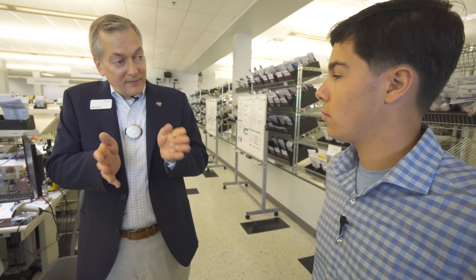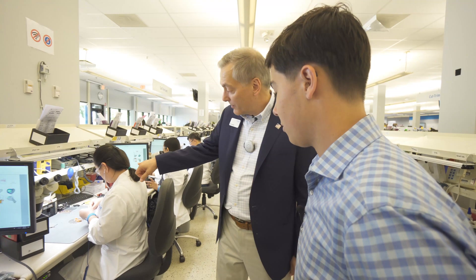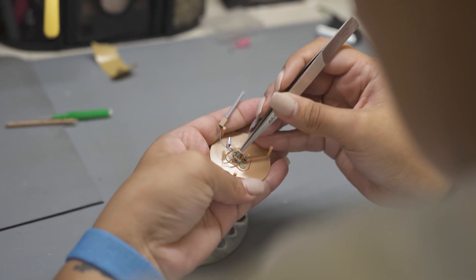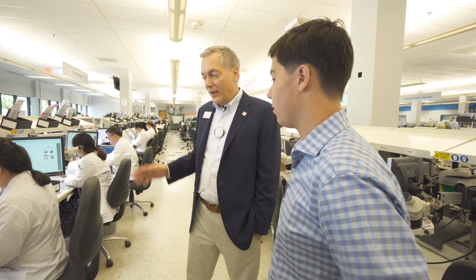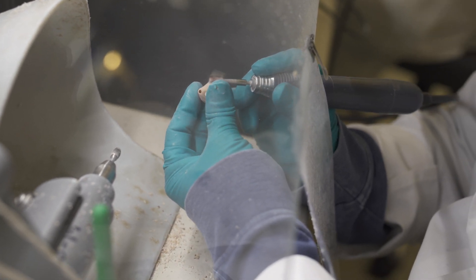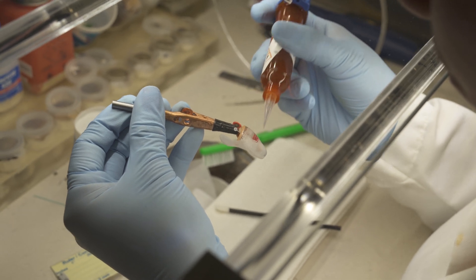The next step is called closing — the faceplate with all the electronics gets mated up with the shell, glued on, and everything is fit inside. Receiver tubing and vent tubing are added and attached into place. Everybody has something that looks like a stethoscope — they're all doing a listening check to make sure what they did didn't short anything out. That's part of our quality control throughout. Then we get to two cosmetic steps: cut, trim, and sand, where technicians buff the shell and ensure the right bevel angle where the shell and faceplate were glued together. Finally, every new product gets a coating of clear lacquer.